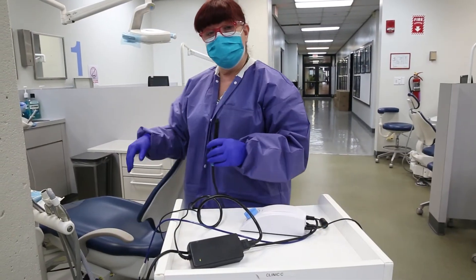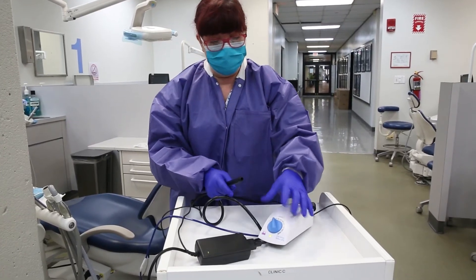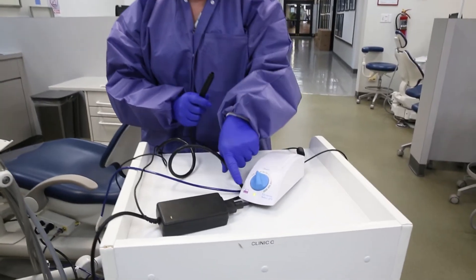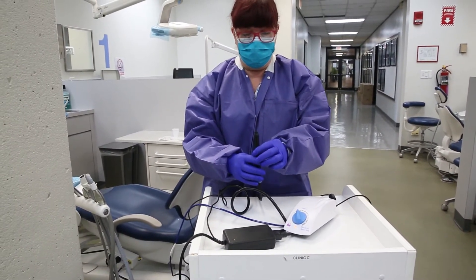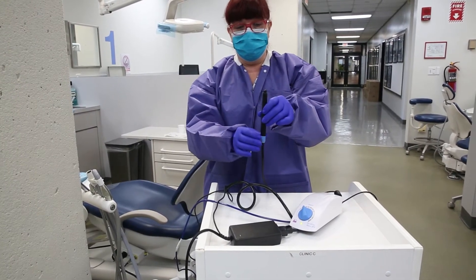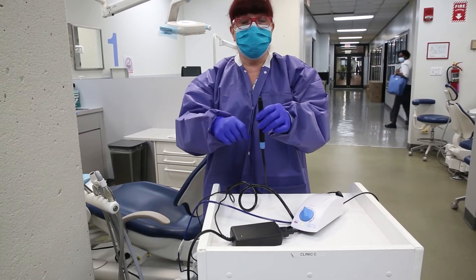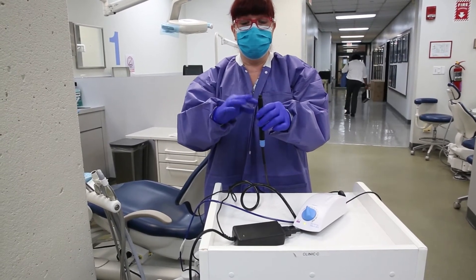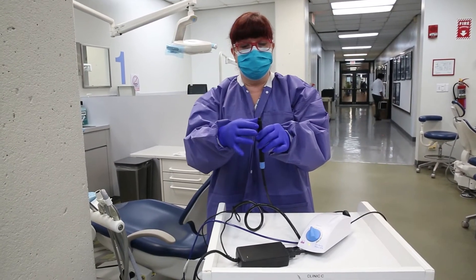Once you've plugged it into the power source, you'll see that the power is on because the light comes on at the bottom. You use the rheostat to fill up the handle with water — you can see it filling up. Once you purge it for two minutes and the bubble is at the top, you would lubricate the O-rings on the insert and put the insert in.